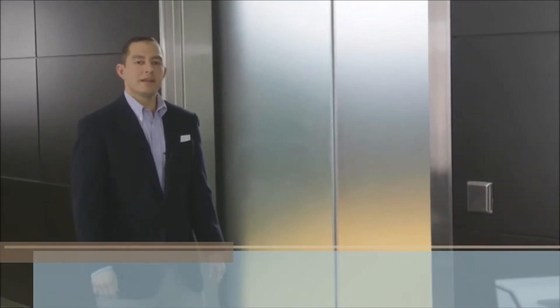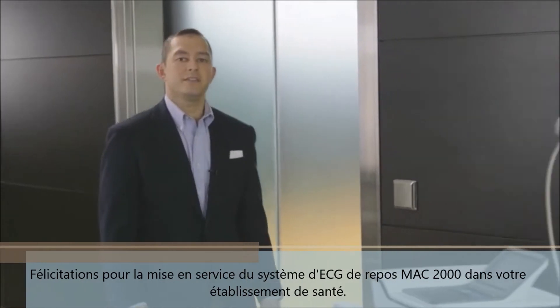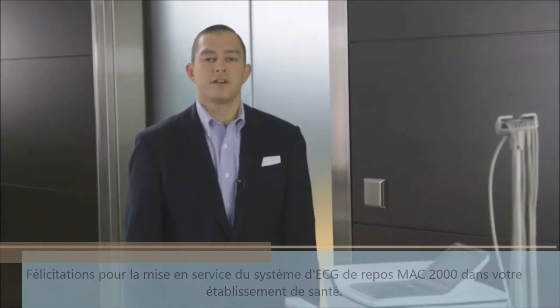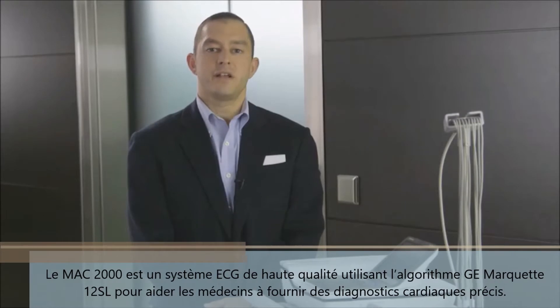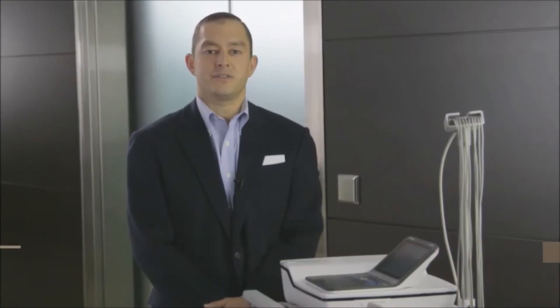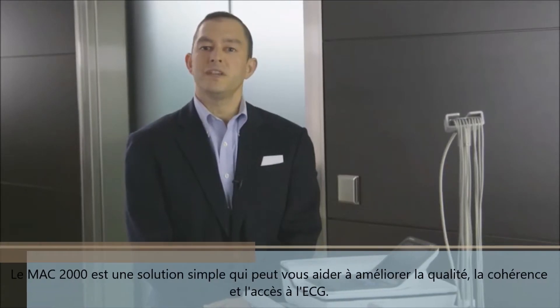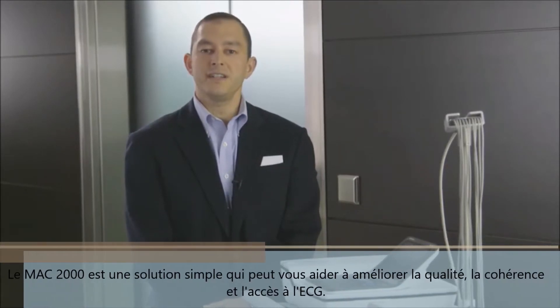Congratulations on implementing the GE MAC-2000 resting ECG system into your healthcare facility. The MAC-2000 utilizes the Marquette 12SL analysis program to assist physicians in making accurate cardiac diagnoses. This is a simple-to-use ECG solution that can help you improve ECG quality, consistency, and access.